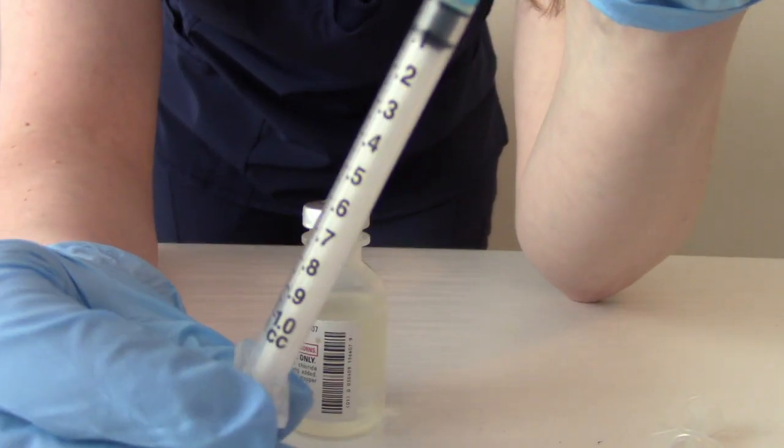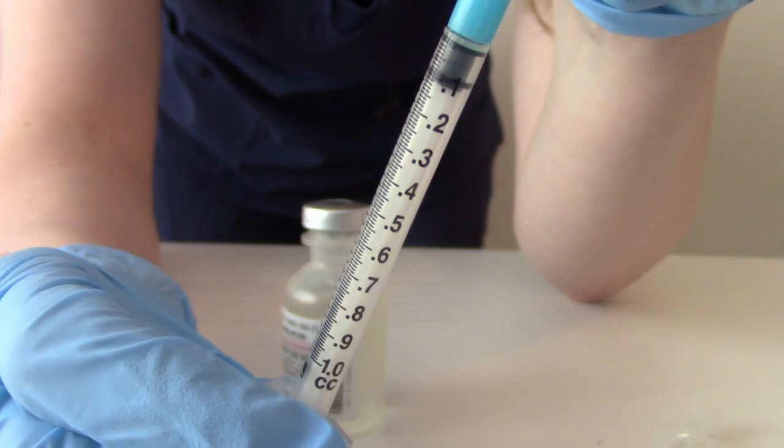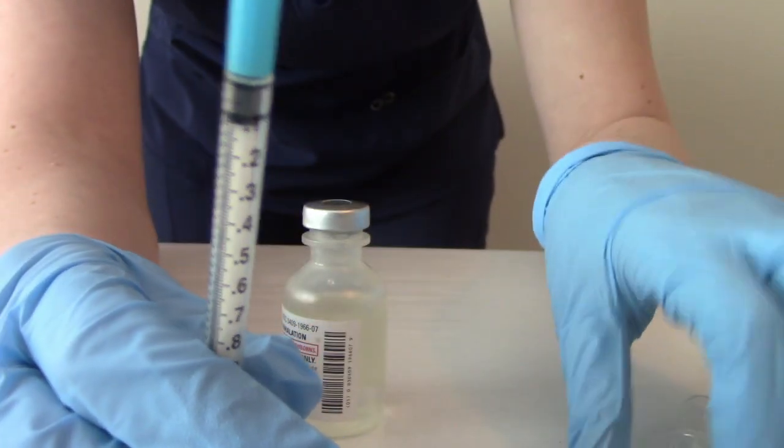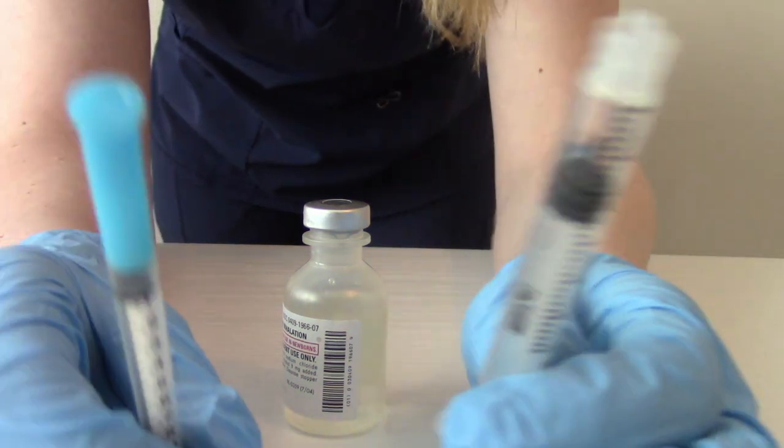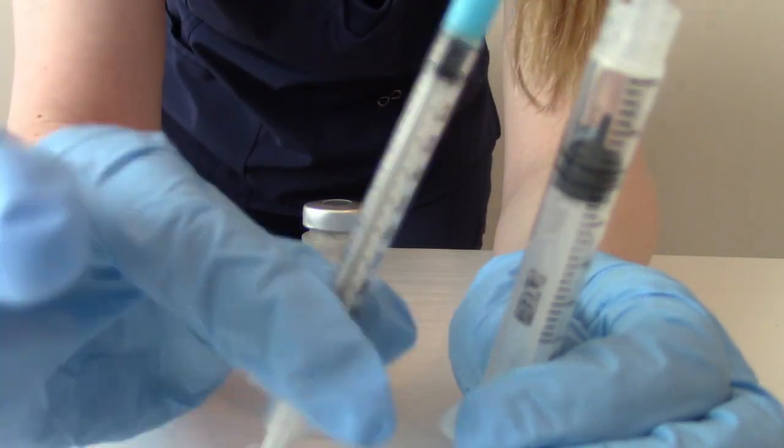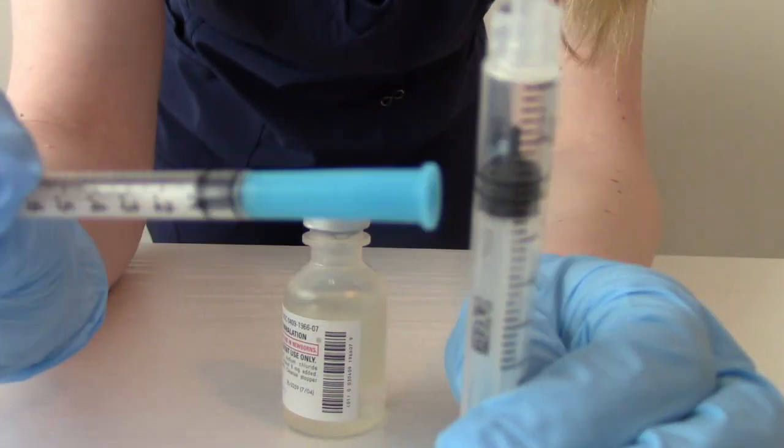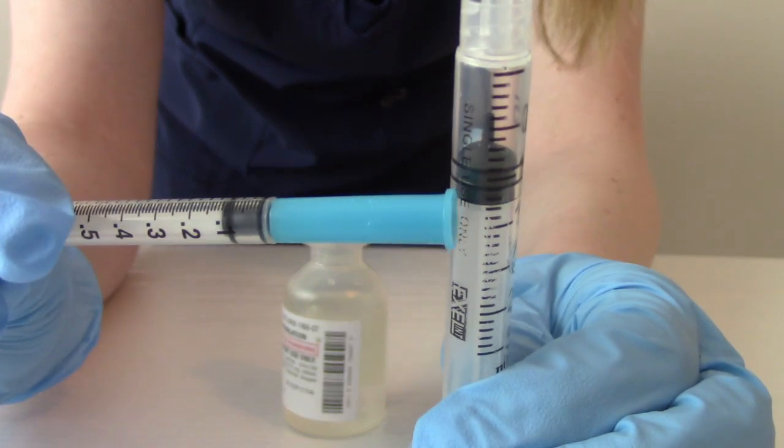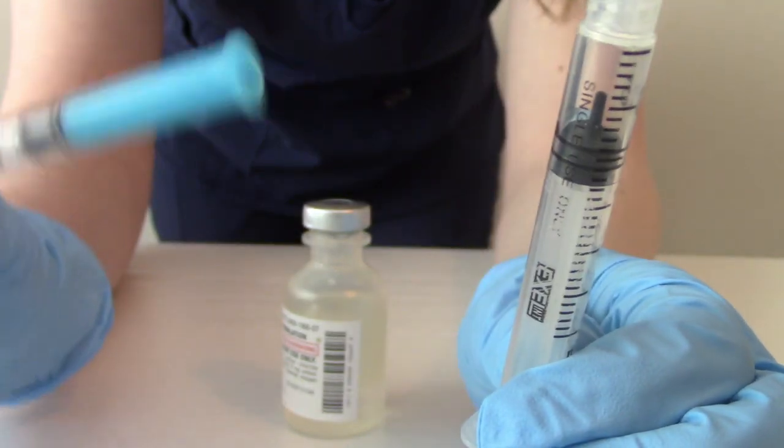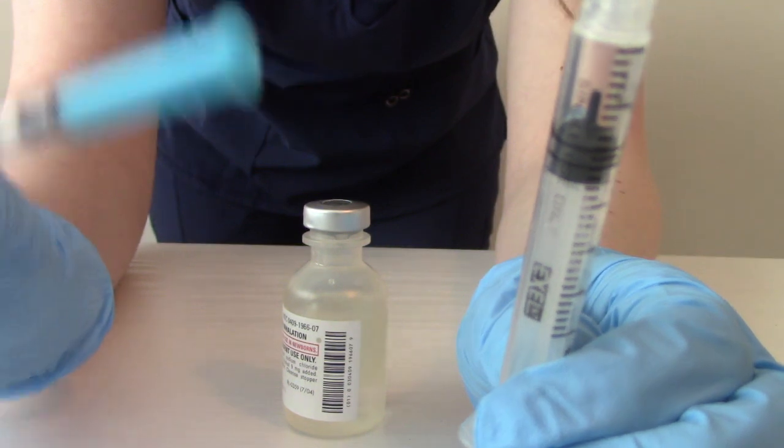This is a very little syringe. This whole thing is 1 mL. So for comparison purposes, this is a 3 mL syringe. So this whole thing is the equivalent of just this little bit in this syringe. This does not hold a lot of fluid. It is not made to hold a lot of fluid.